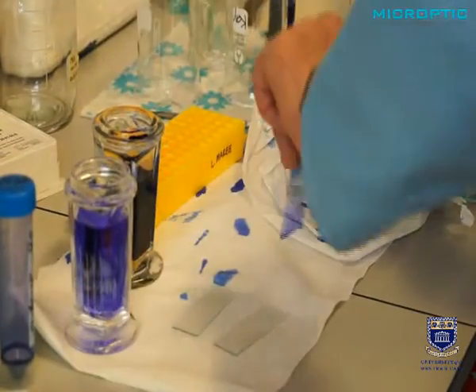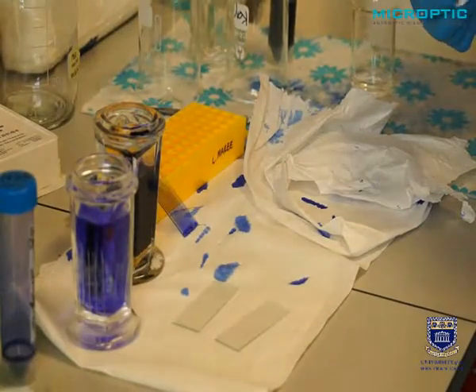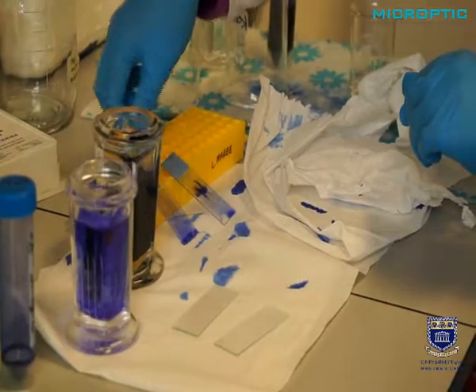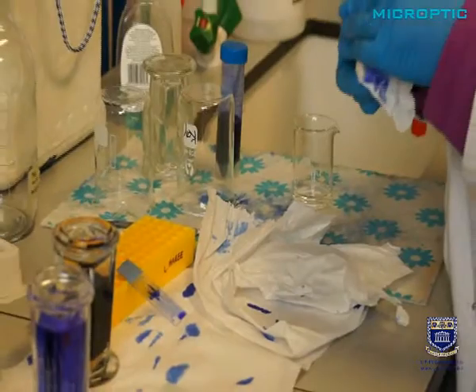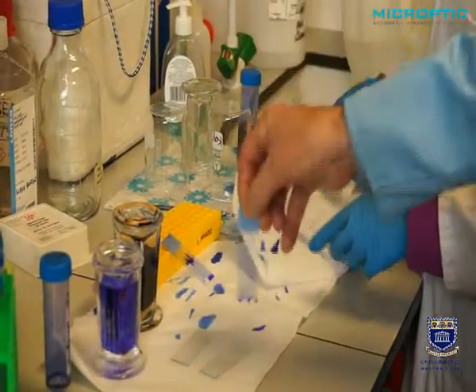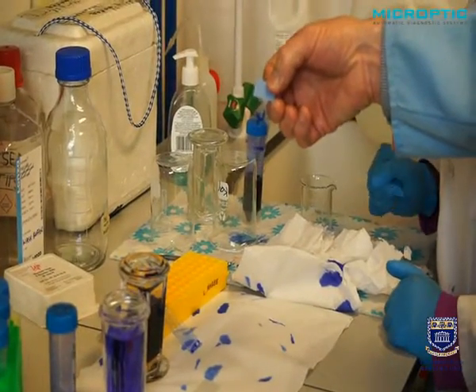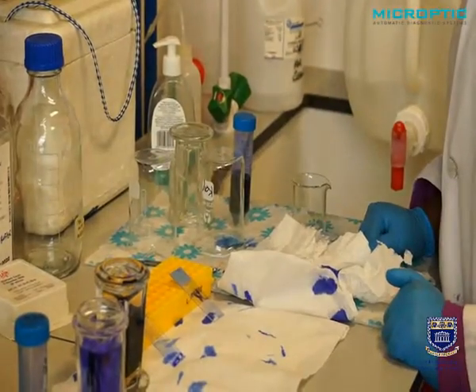We can normally just take off most of the stain also at the tip, and also clean the back of the slide. This is really important. Lots of people do not take care to clean the back of the slide. Thank you. And you can see that is a very nicely stained slide. This one, maybe there was too much sperm, too much seminal plasma proteins there, and maybe it's not a good one to use at all. Perhaps stain another one.